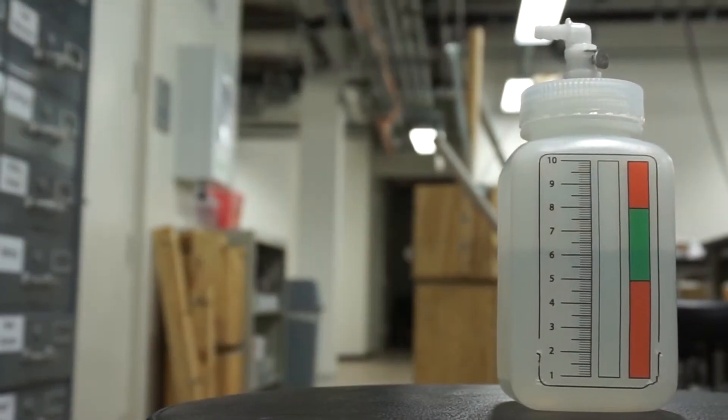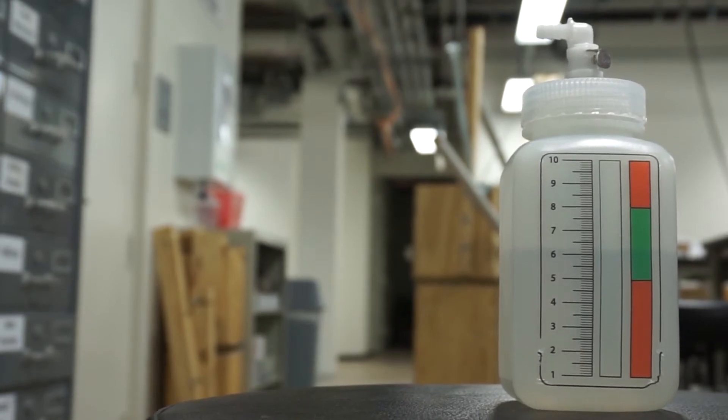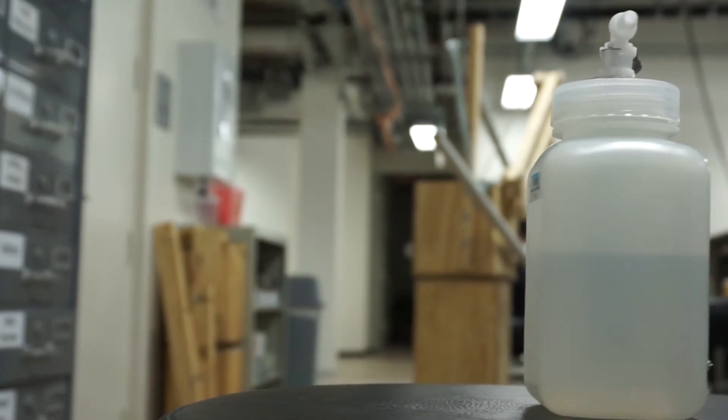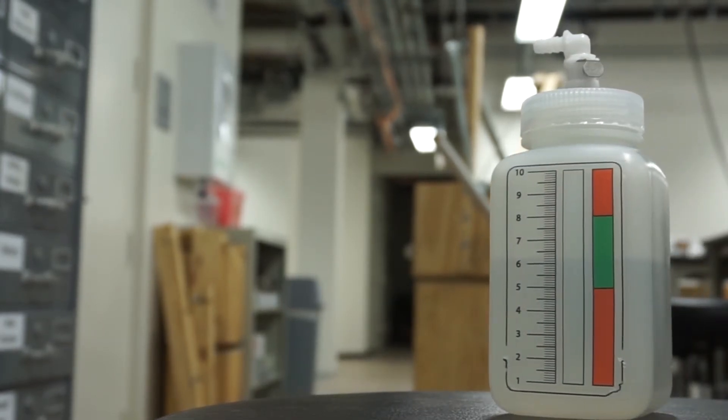The bottle is filled to the green level with different volumes of water based on the amount of pressure the technician wishes to deliver to the baby. Excess pressure is released through a control tube which sits inside the bottle, causing the bubbling.